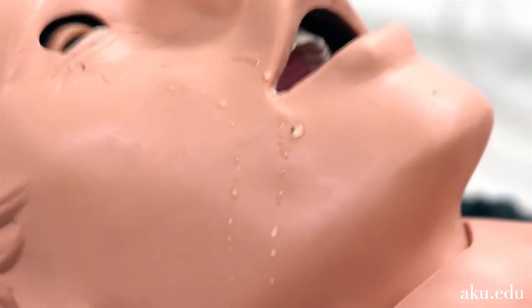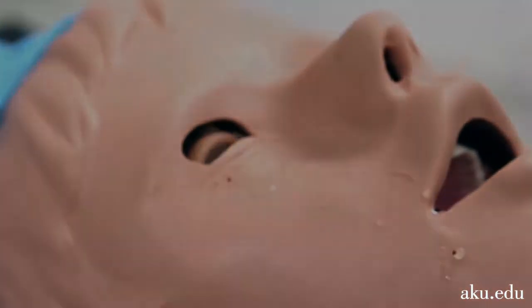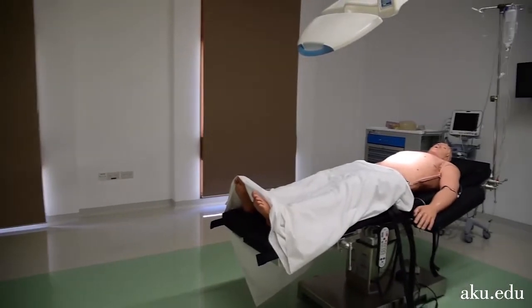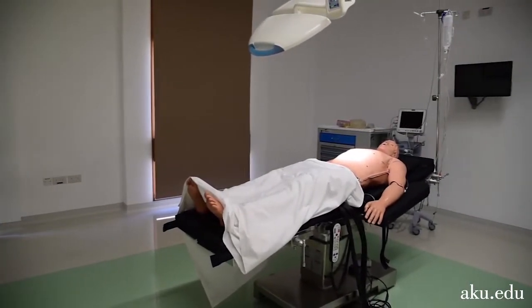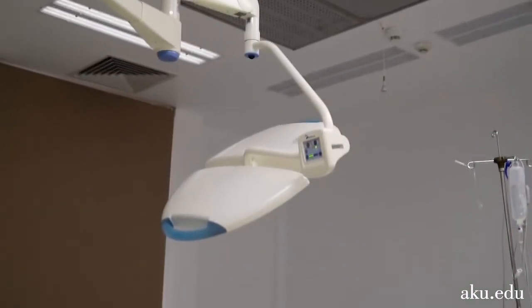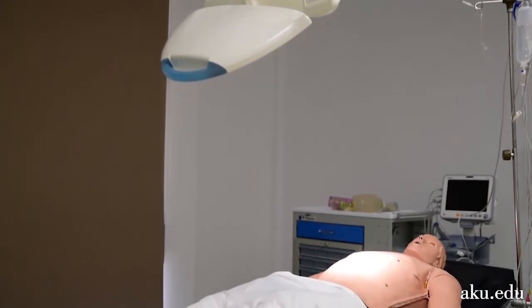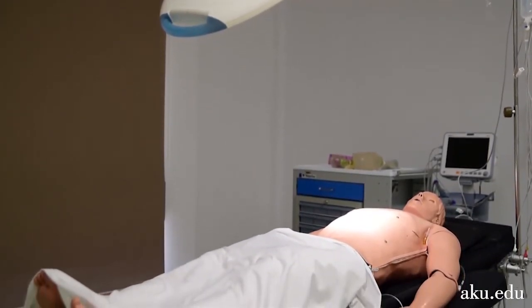The comprehensive features of the HPS allow medical professionals to practice repeatedly and eventually master their skills in an environment that permits errors without putting real patients in danger. This provides a safe environment to learn and prepare for real-life scenarios.